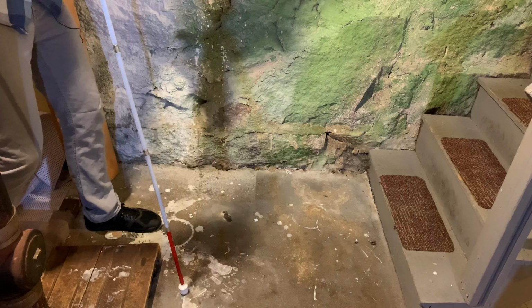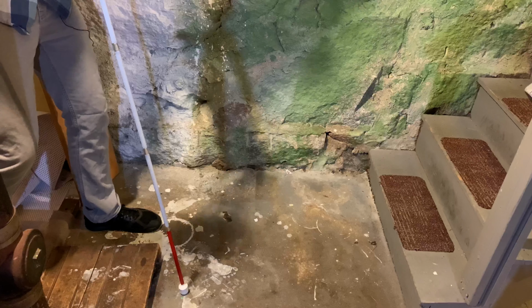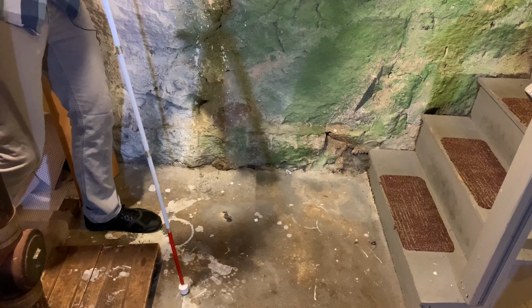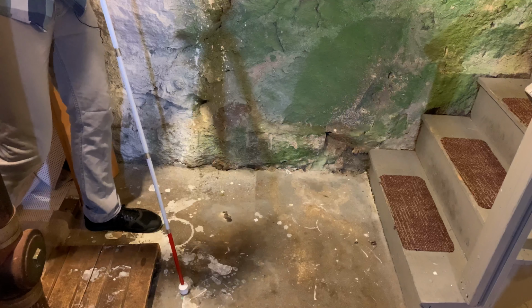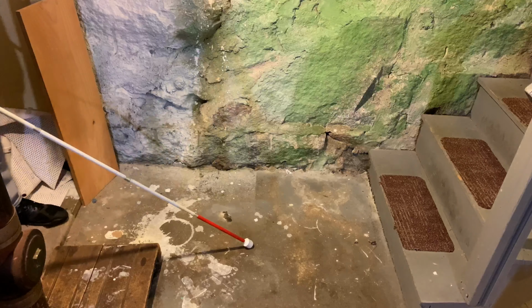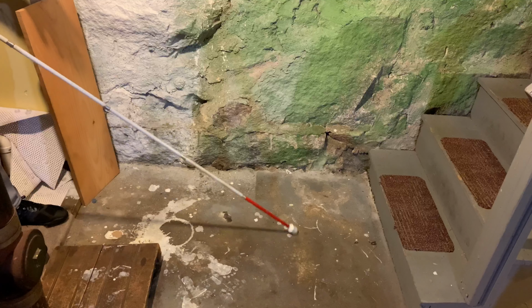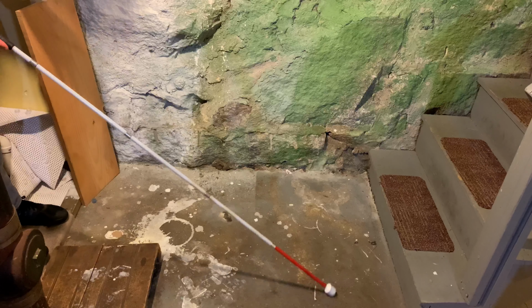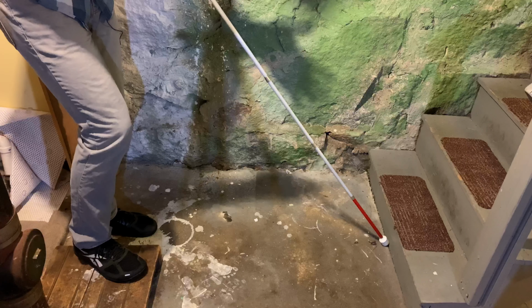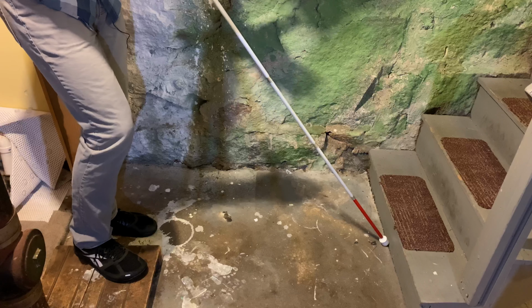Okay, so step one is to locate the stairs. Before you can go up the stairs, you need to find them. You can be locating or looking for the stairs using either two-point touch, constant contact, or even diagonal cane technique. And for this little demo here, I'm going to be using constant contact. So I'm going to be approaching the stairs. I don't have a lot of running room here to get up to it, but I can take a few steps. So I'm doing constant contact with my cane, and my cane just got stopped by the bottom of the first step. So that's step one, locating the stairs.